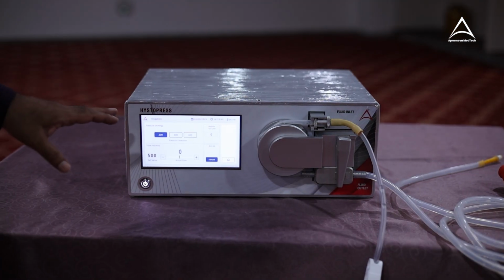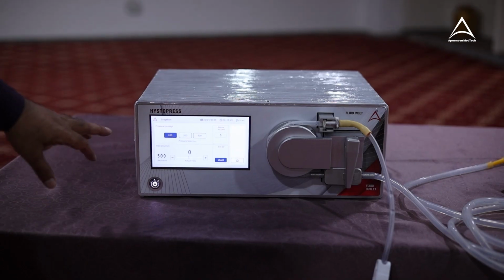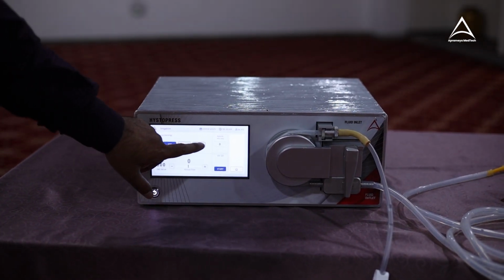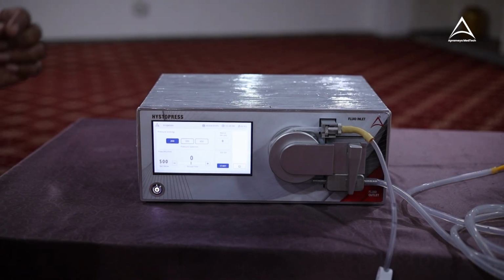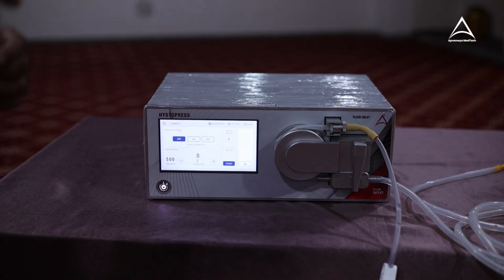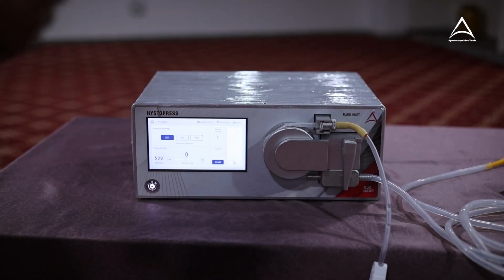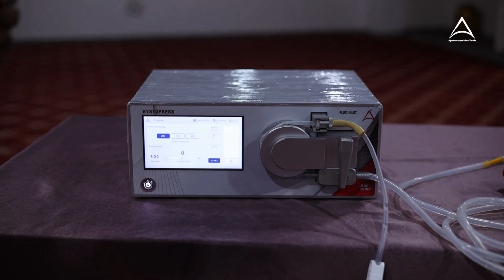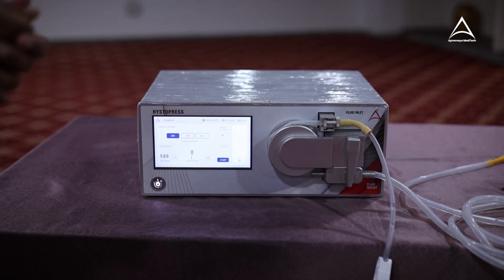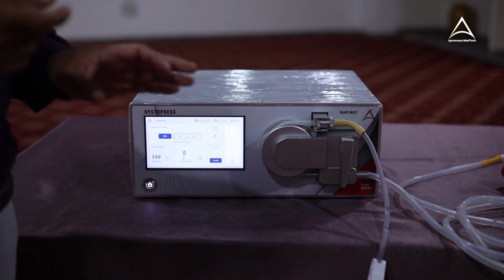This is a dedicated program for laparoscopy irrigation. In this, you can select pressure 200, 300, 400. This is actually a controlled irrigation. Many times you have seen in other machines when the doctor is trying to flush the liquid inside, he wants to irrigate, he has to go for a foot switch and it operates from foot switch. Like on and off, he continuously uses the foot switch there. But in our machines, we have given a controlled irrigation.